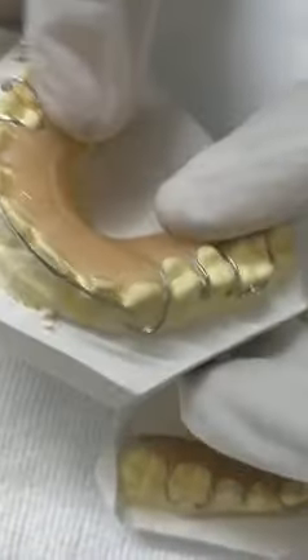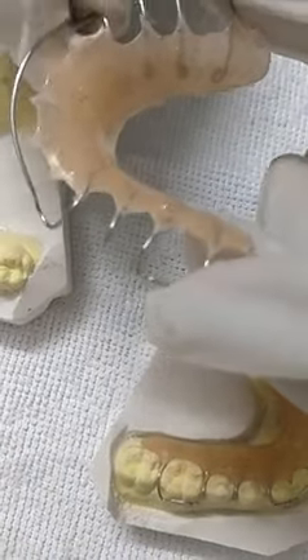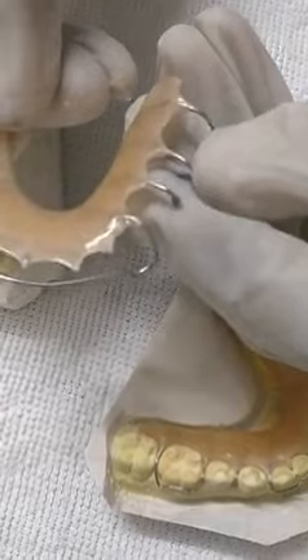See the seating — pretty tight. You can still tighten them by just pressing over the labial bow, you can tighten it like this, and then you can tighten these clasps like this.